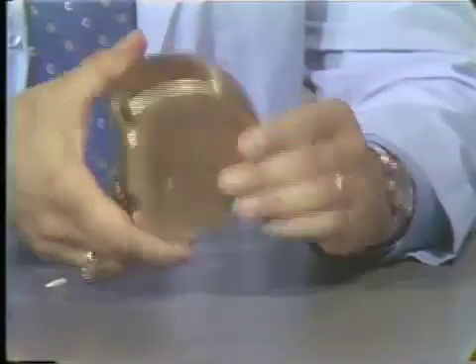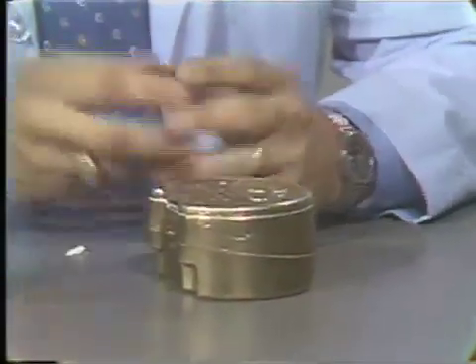This is what it will look like prior to going to the next stage. In summary, we have flasked the upper and lower denture. We have made three pours. Two of those pours will remain with the top half of the flask and the first pour will remain with the master model. These pours differed in the type of plaster used because we would like to have adequate strength and yet we would also like to be able to remove the plaster mixes easily from the denture after it is processed. Now we are ready to go on to boiling out the denture, which would be the next phase in processing.